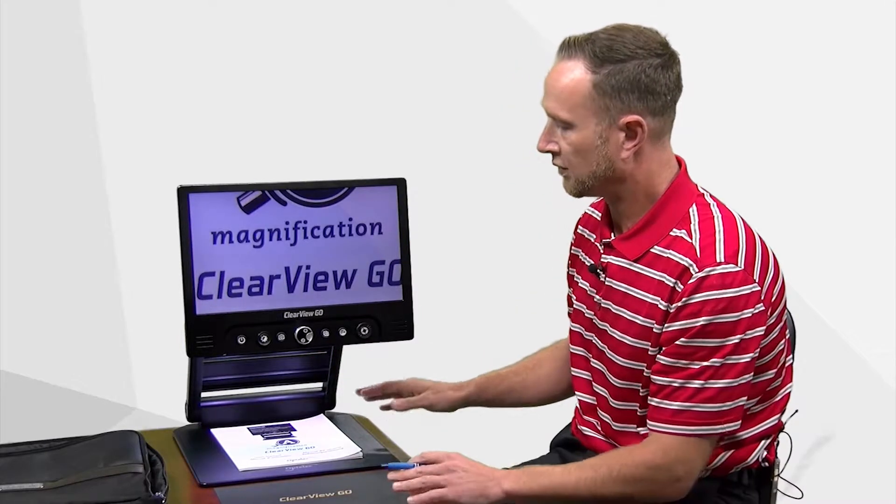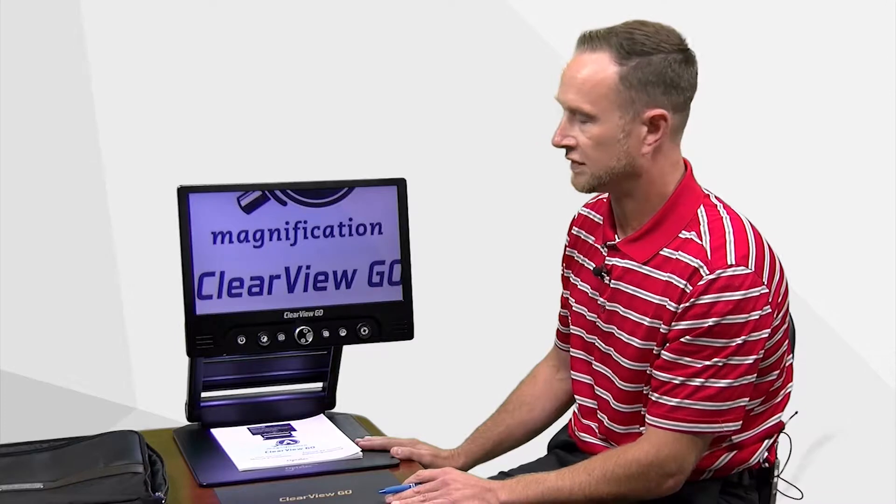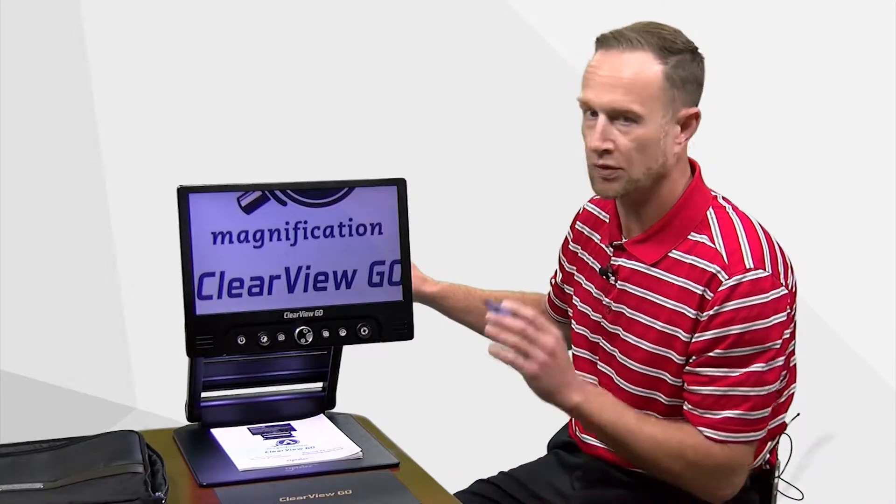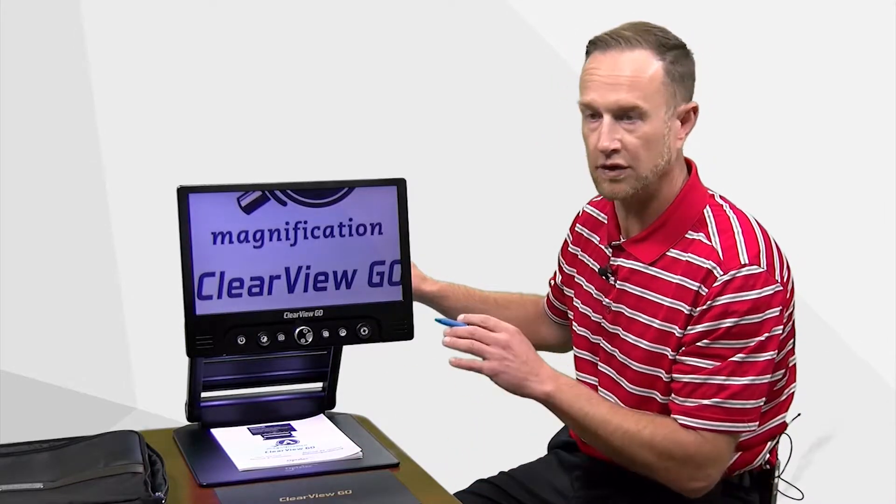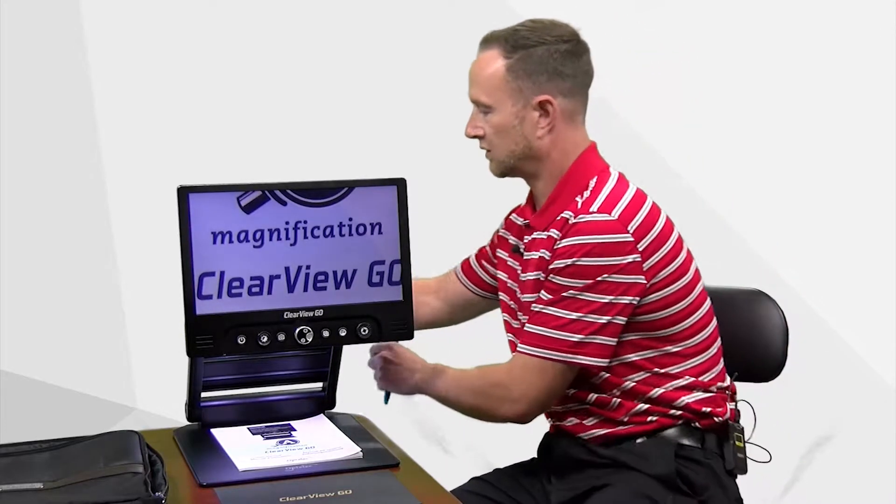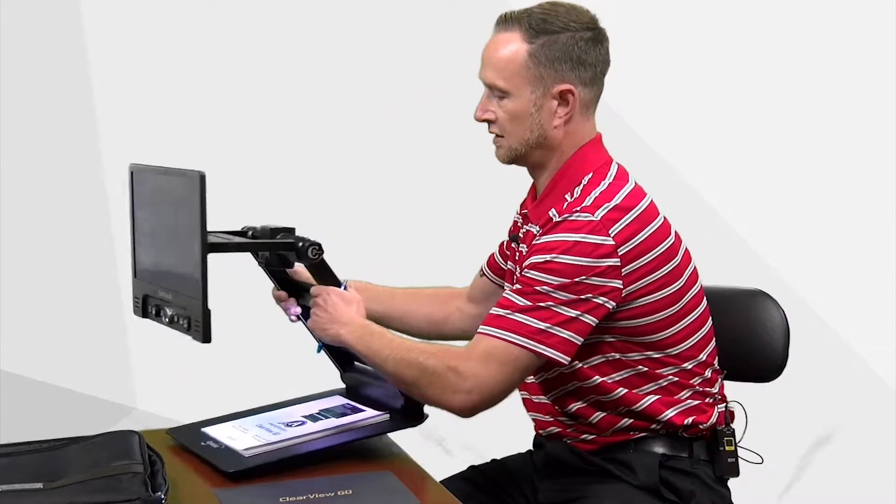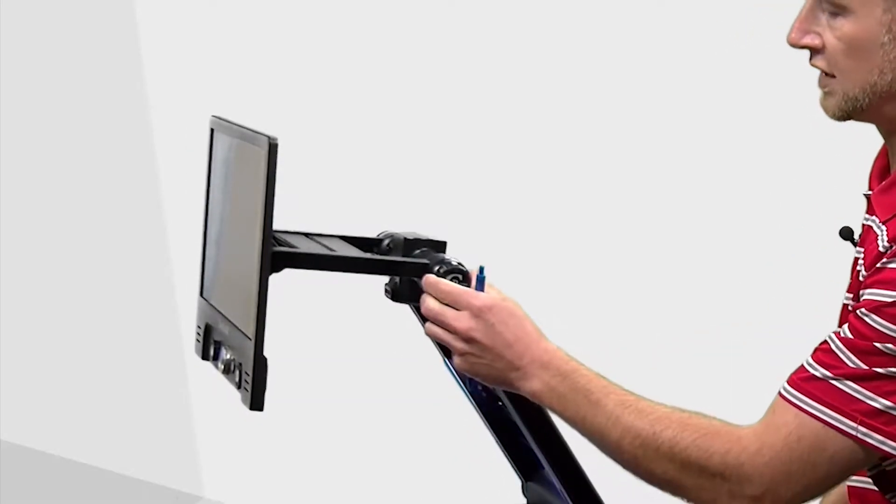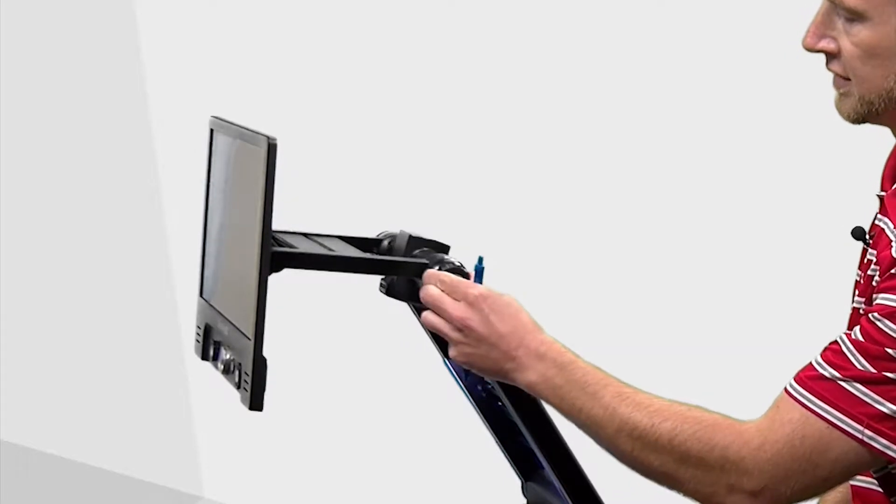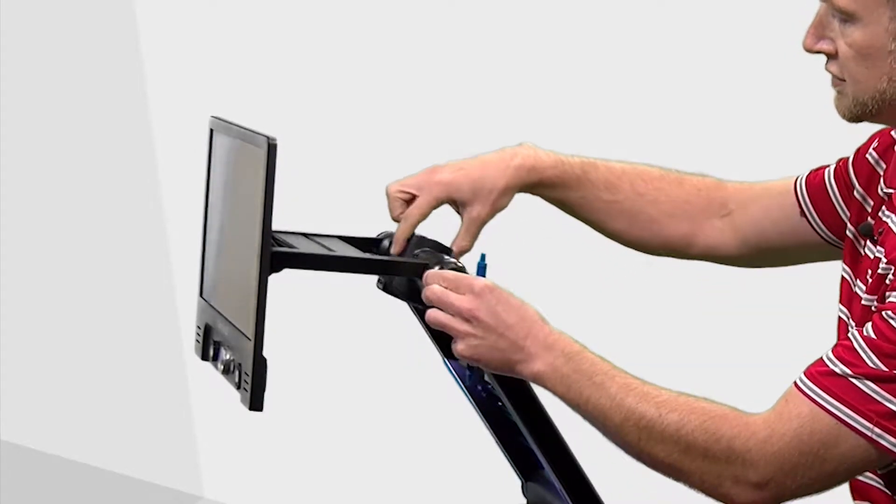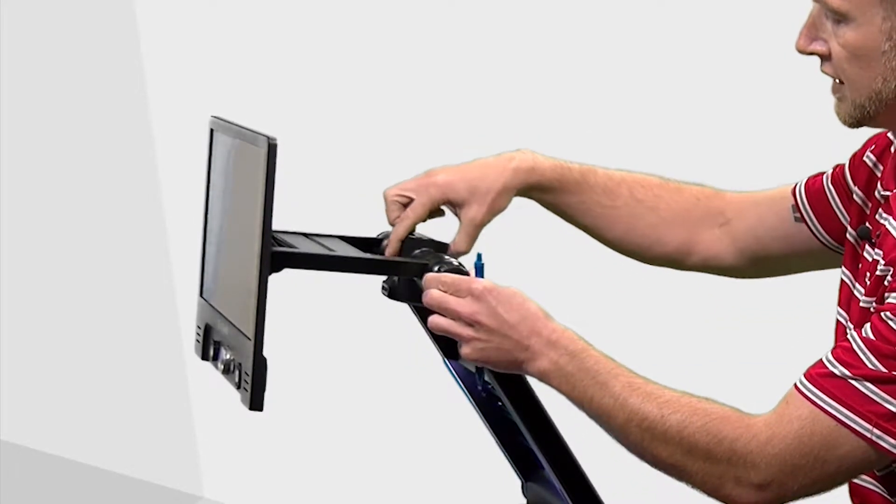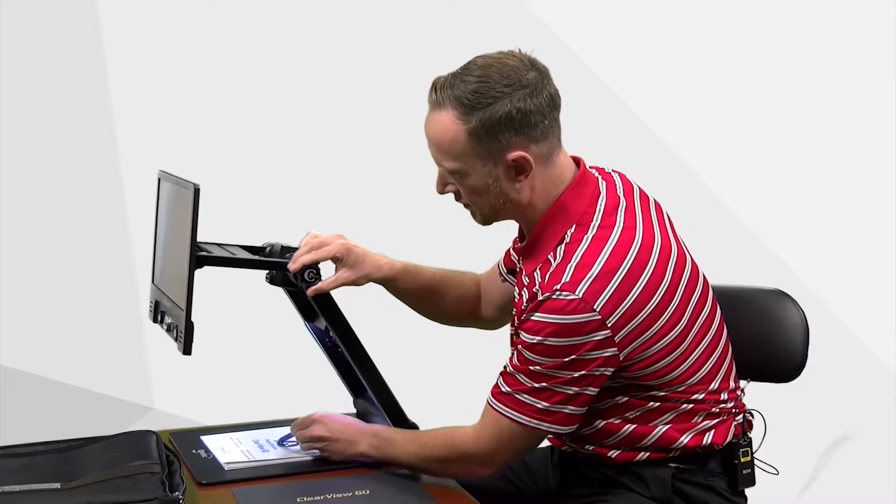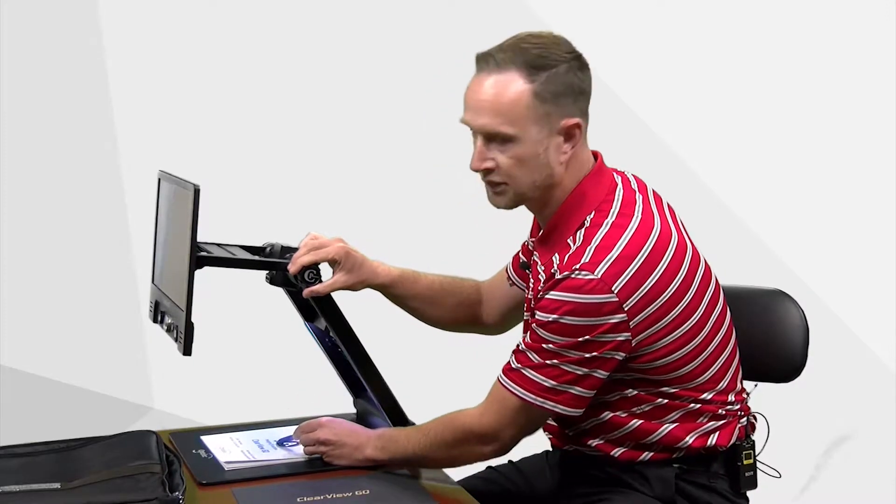But one of the other really truly wonderful features of this is the ability to write wherever you want underneath here. I'm going to quickly rotate this machine to give you an idea. There's a rotating wheel here that I can turn up and down. This gives me the ability to change the angle of the camera and essentially write wherever I want underneath the document.